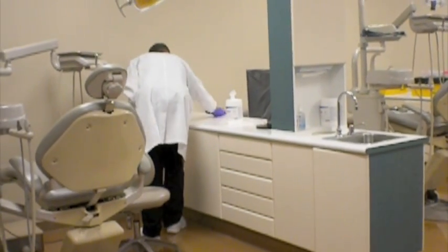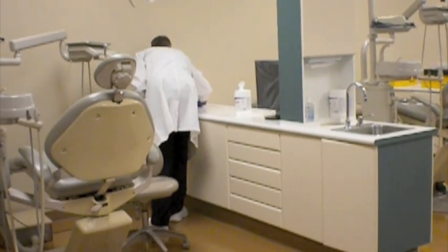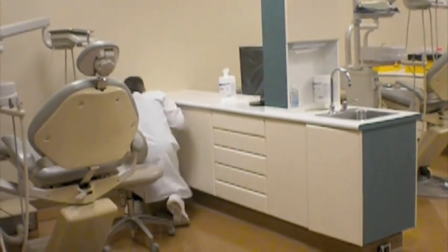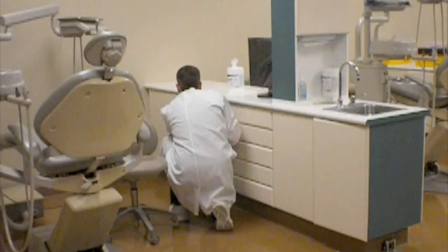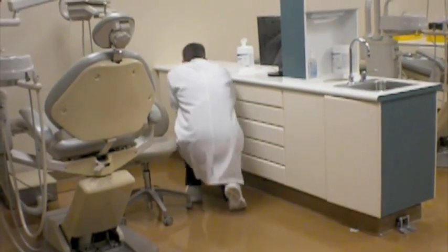He'll then move to the doors of the cabinetry, moving top to bottom and completely wiping top to bottom, making sure that the doors are not opening, and you're not to wipe inside of those areas because there are patient treatment supplies in there, correct? So you'll wipe those cabinets, and then you'll move to the drawers at the unit.